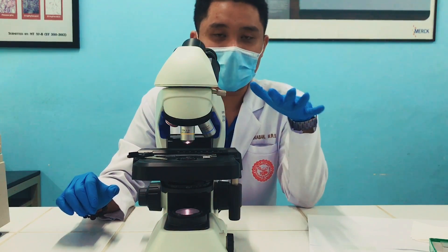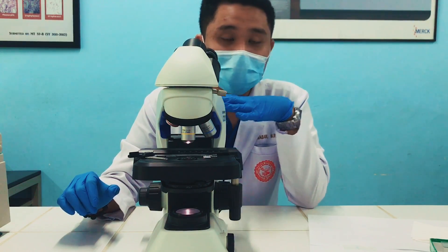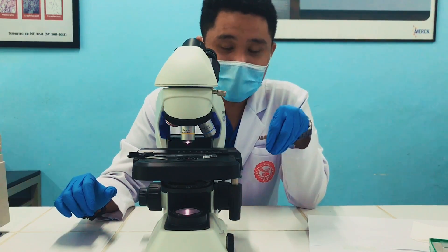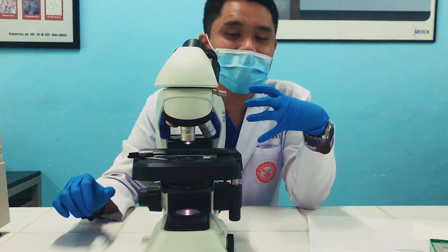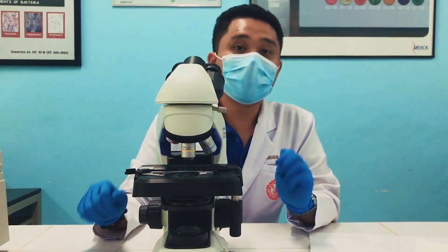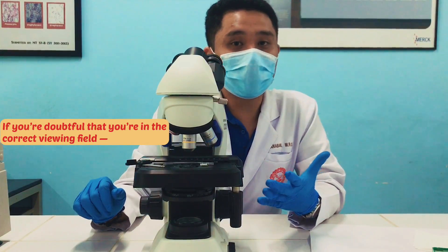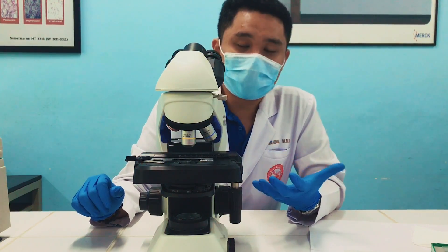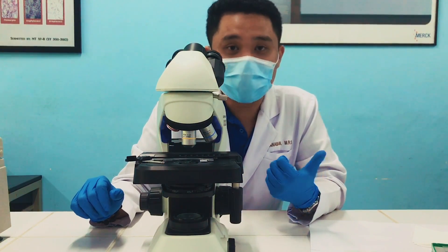For the remaining sediments, they are to be examined under the high-power objective. We will not use the oil immersion objective — only up to the high-power objective. What is essential in microscopic examination of urine is that you can identify the sediments seen under the microscope. An important reminder: if you are doubtful whether you are in the correct viewing field, look for a squamous epithelial cell, because these cells are large enough to be seen under the LPO. Once you've seen a squamous epithelial cell, you can be confident that you are in the correct viewing field.